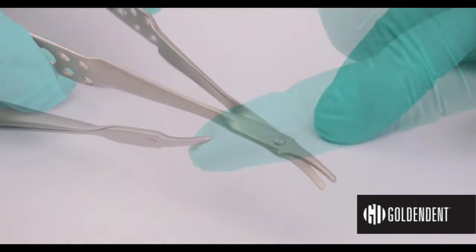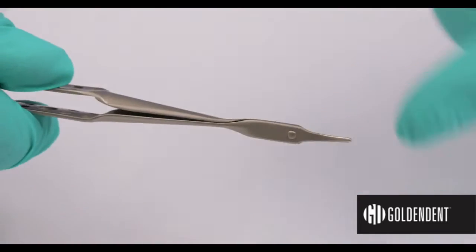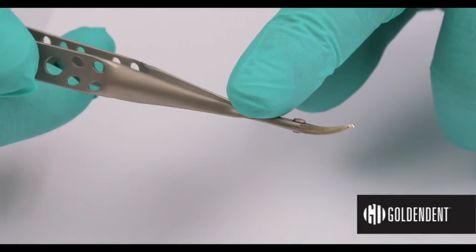The flexible material allows for more torque, which results in an increase in power and strength to the very tip of the scissor, which enables this design to be possible.